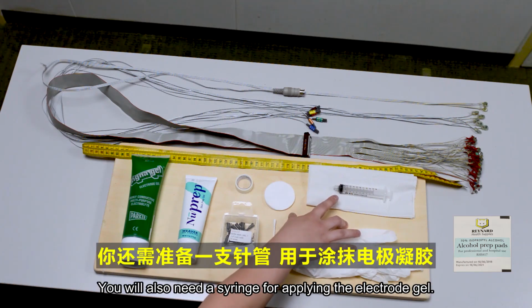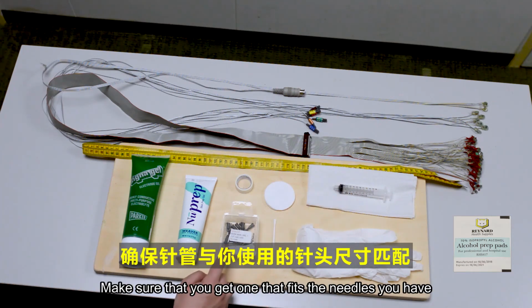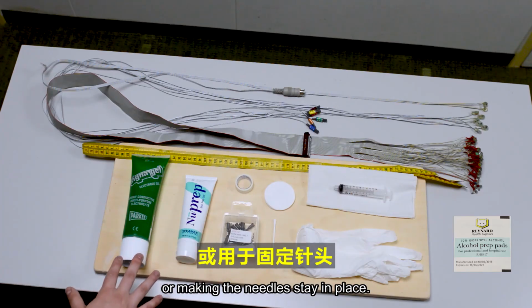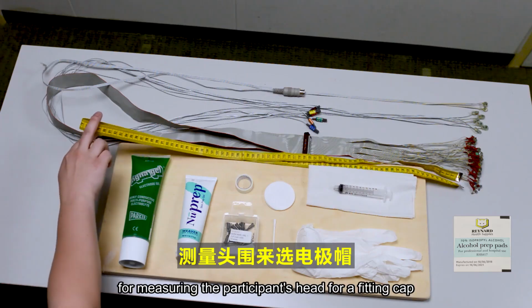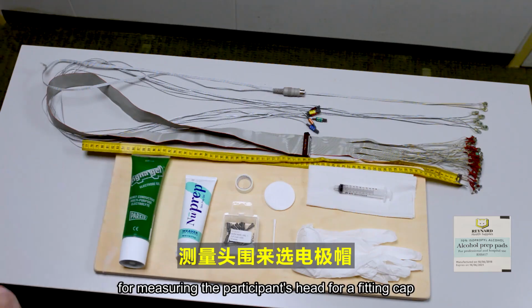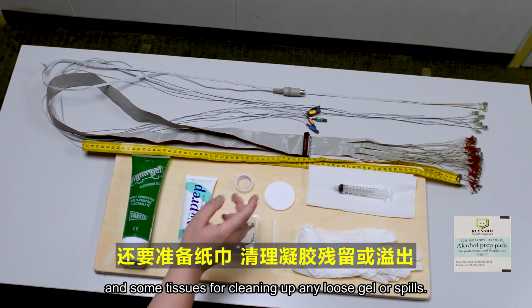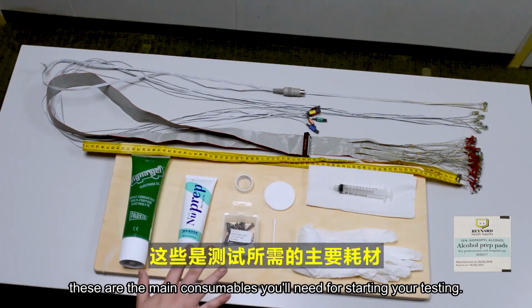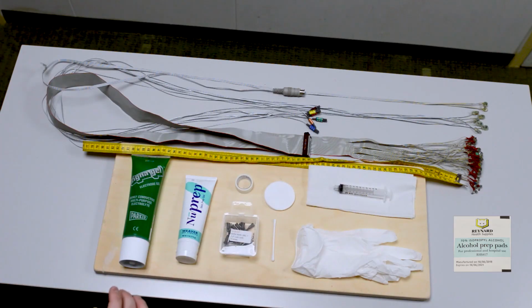You will also need a syringe for applying the electrode gel. Make sure that you get one that fits the needles you have, otherwise you might have trouble filling it up with gel or making the needles stay in place. You will also need a measuring tape for measuring the participant's head for a fitting cap, and some tissues for cleaning up any loose gel or spills. All in all, these are the main consumables you'll need for starting your testing.